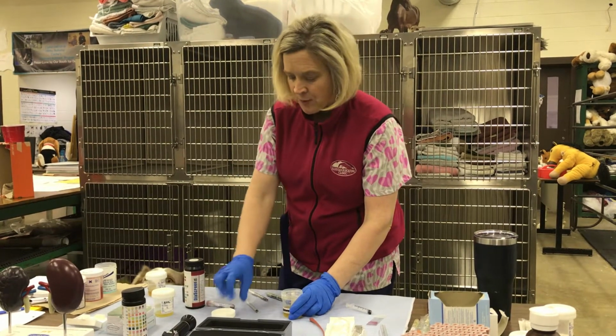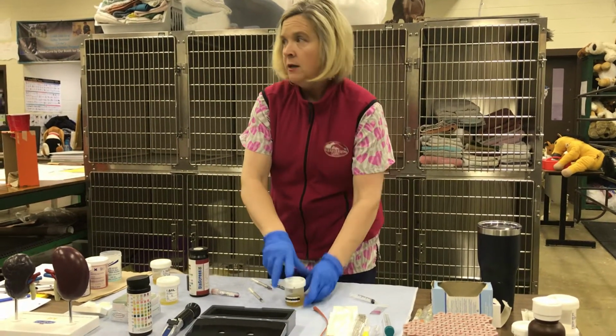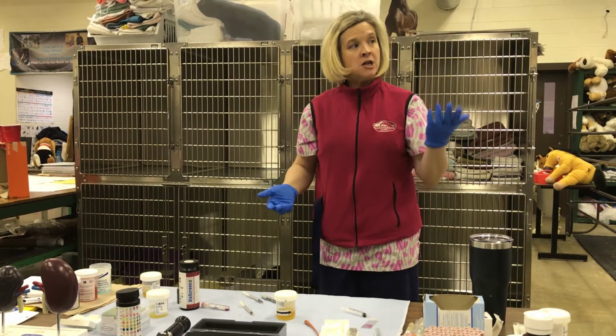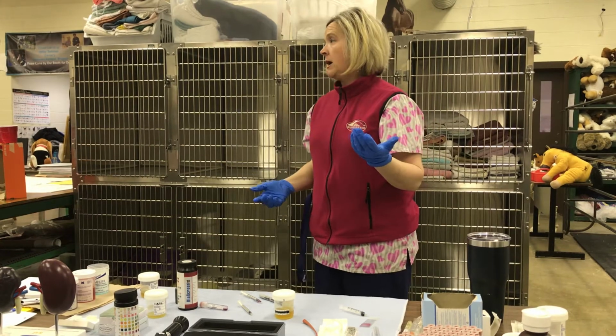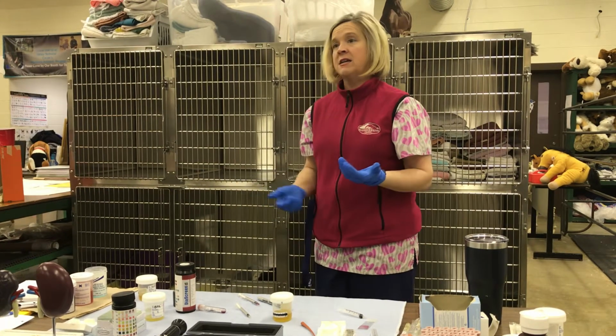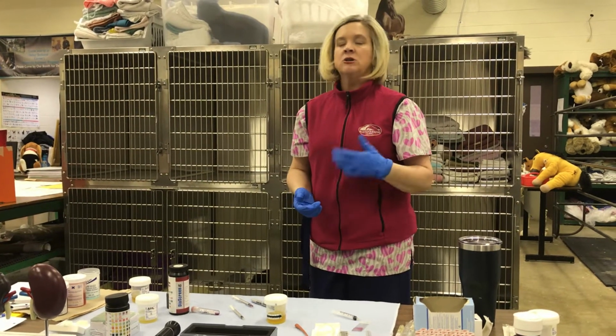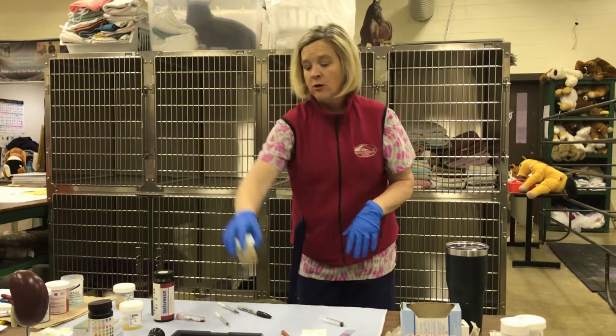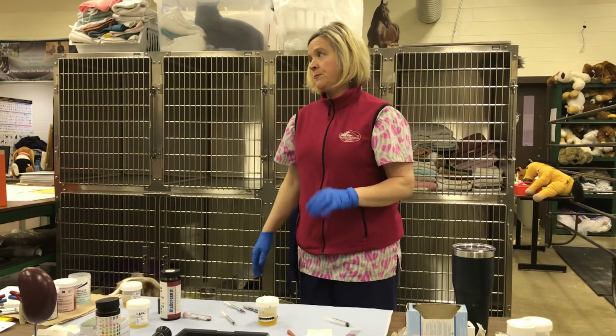Your urine sample, once you are done, okay, please make sure that you check with your doctor, because for any reason, the doctor may want to see the sample, okay? Or they may say, hey, I'd like to get a culture and sensitivity from that. So you may want to double check with your doctor before you throw out or discard your sample.